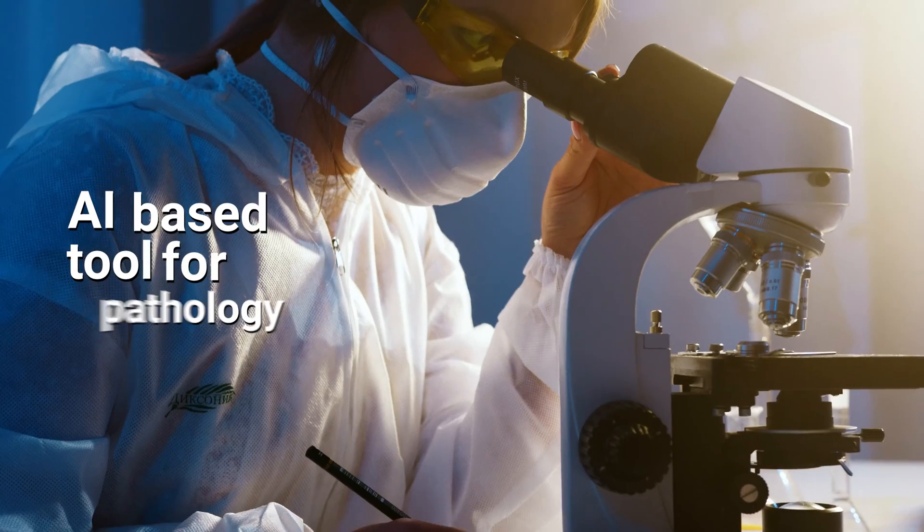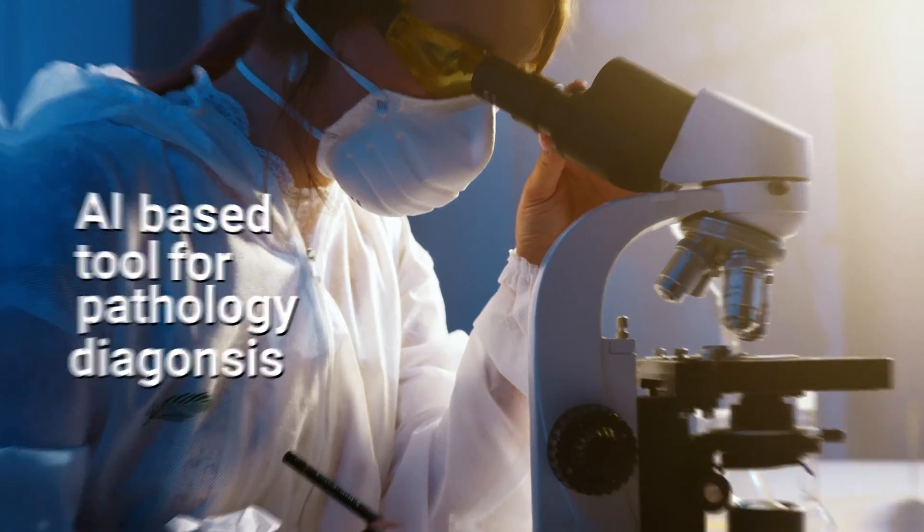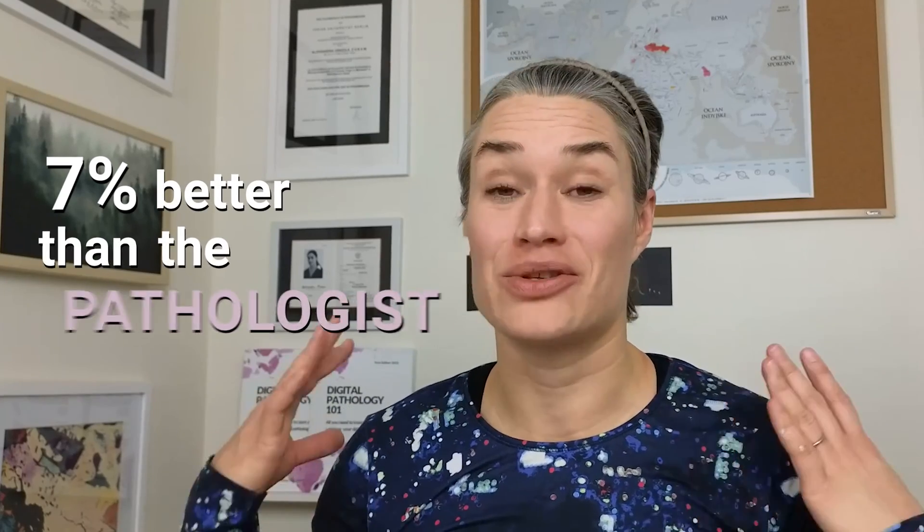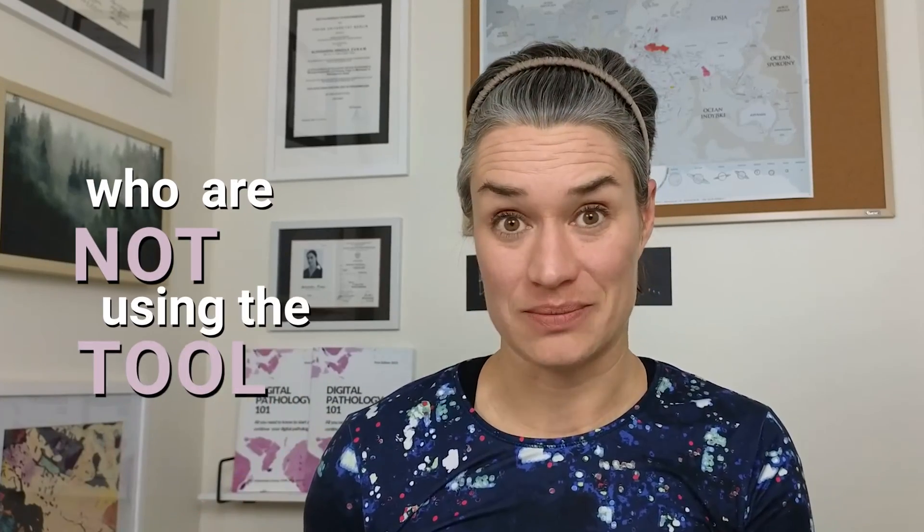In a validation study of the first FDA-cleared AI-based tool for pathology diagnosis, the pathologists using the tool were 7 percentage points better than those not using it. The team of pathologists plus AI outperformed both the pathologists alone and the AI alone.